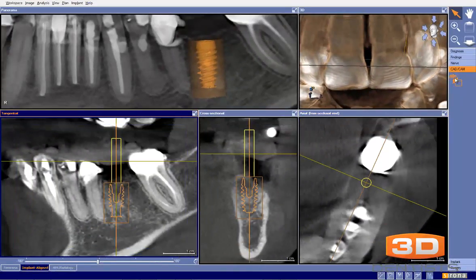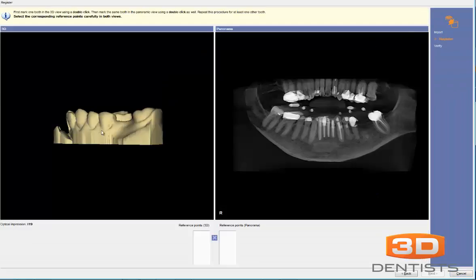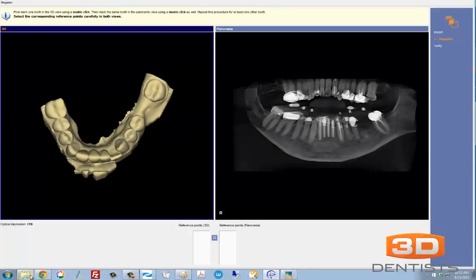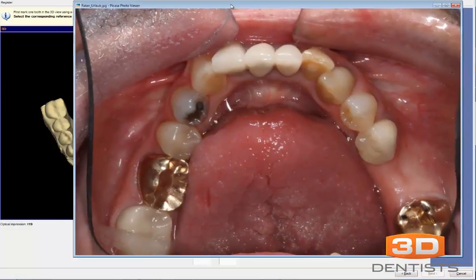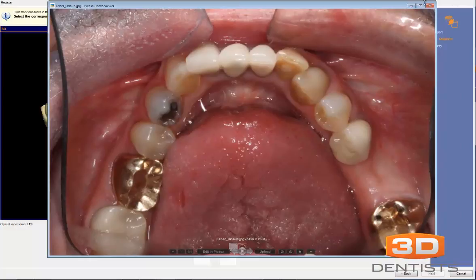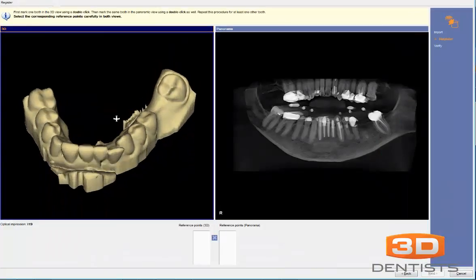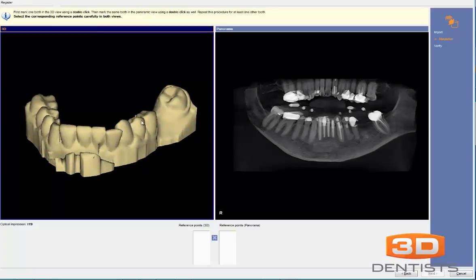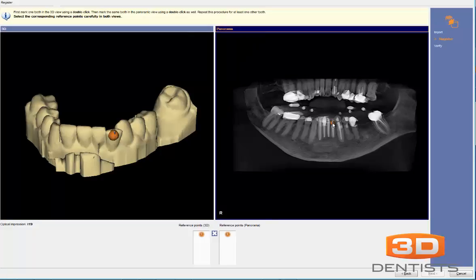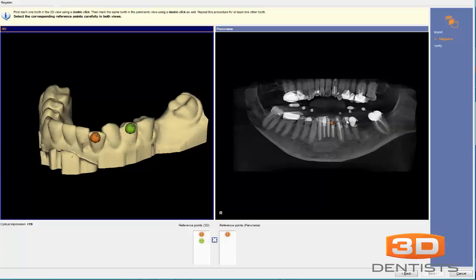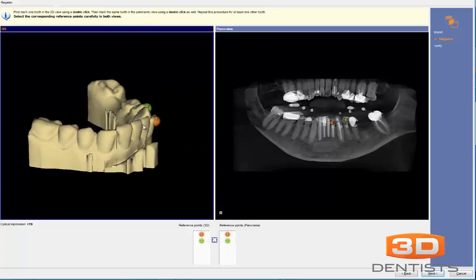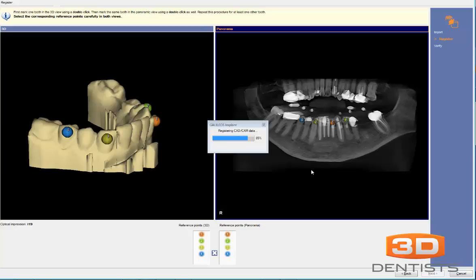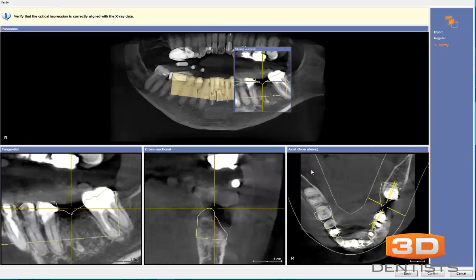Our next step is to bring in the CAD-CAM data. Here we have our CAD-CAM data pulled up. From our photograph, we know which teeth we can use as integration points. Those teeth will be tooth number 23, 22, and 21 — so we'll do 23 and 21. Then on the patient's left-hand side, we'll do number 27 and number 20. This should allow the software to register the CAD-CAM data. Typically we only need two points, but in the case where we have this much scatter, I'd like to give the software a little more information for integration.